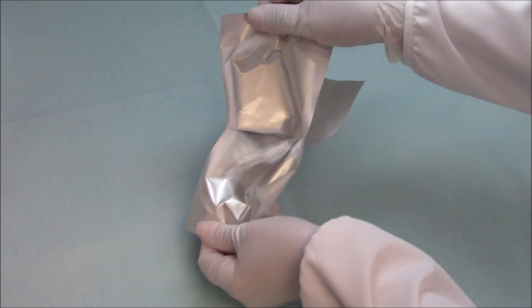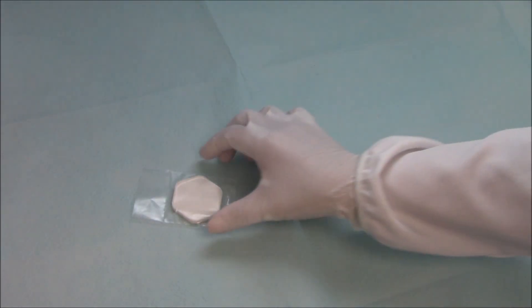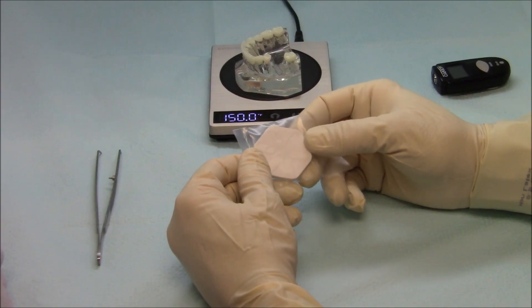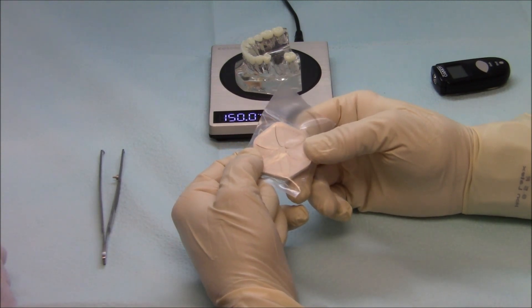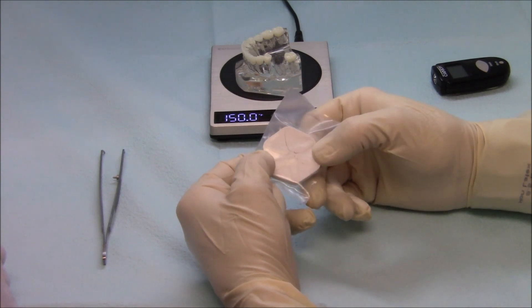Open the pouch and keep the graft material in the sterile bag. The graft material is contained in a flexible, medical-grade silicone tray. The tray is flexed while in the bag to loosen the petals from the tray and to prevent dropping the material.